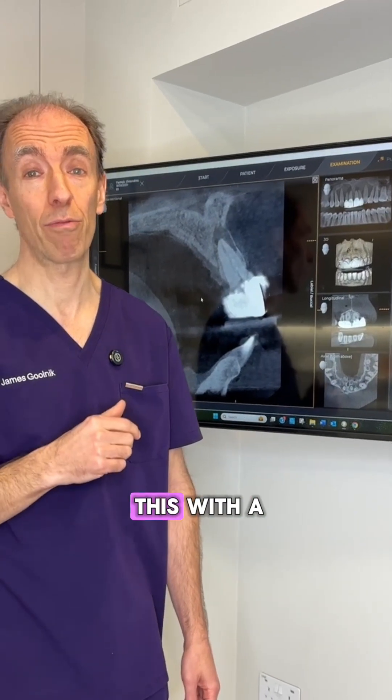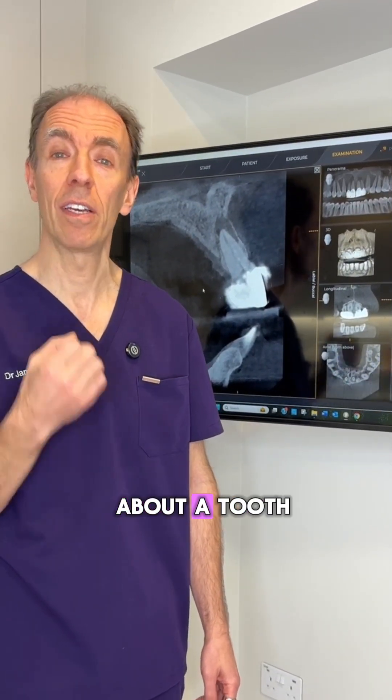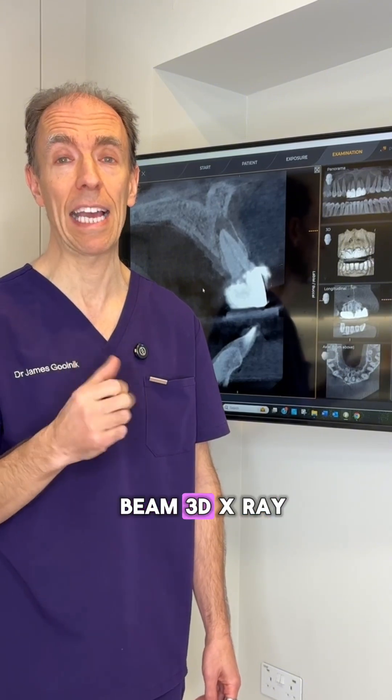So you can see this with a 3D x-ray. If you're worried about a tooth, come and see your dentist and get a cone beam 3D x-ray.